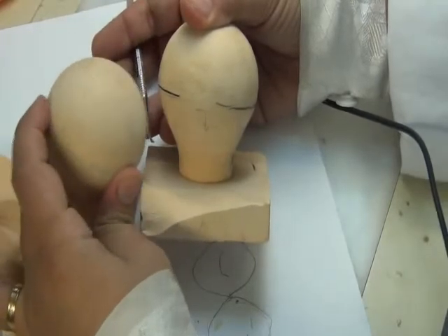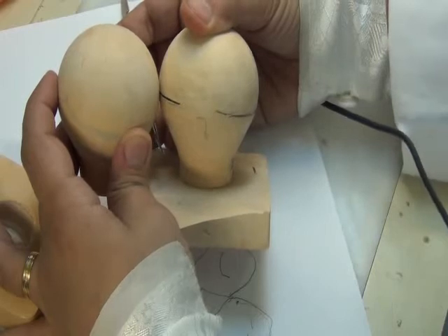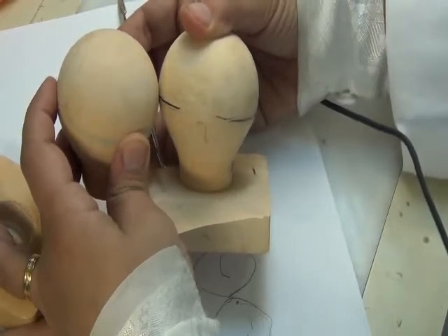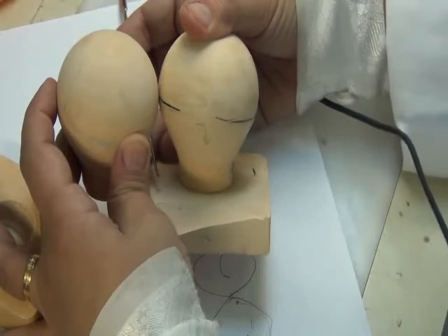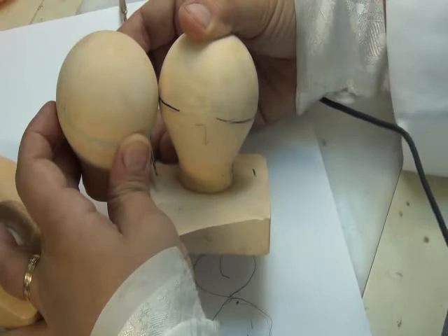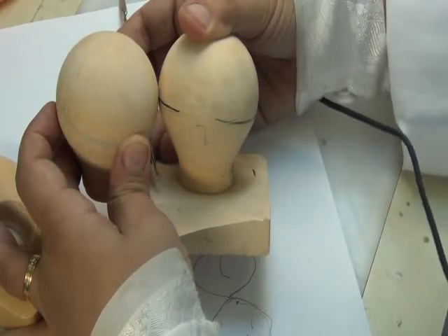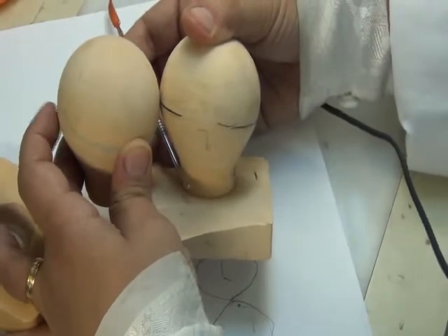Because this wire is away from the contact area, I still can come in contact with the tooth. I'm still inside the embrasure between the teeth. So the wire runs in the middle, not interfering with the contact of the other tooth with my artificial tooth. My artificial and natural teeth still come in contact, although the wire is in between them. And this is what I need to make sure when I'm putting teeth onto the cast.